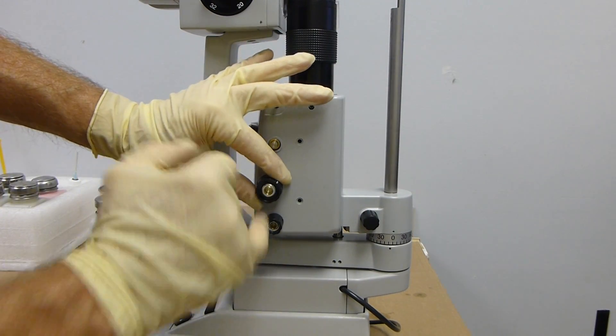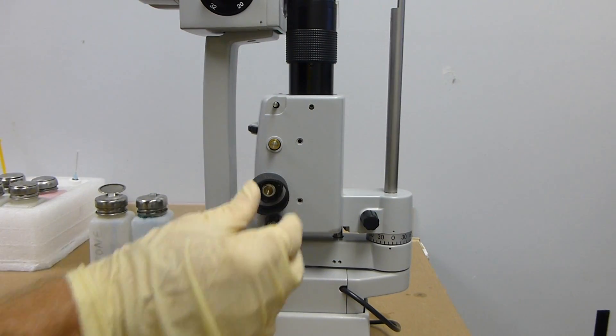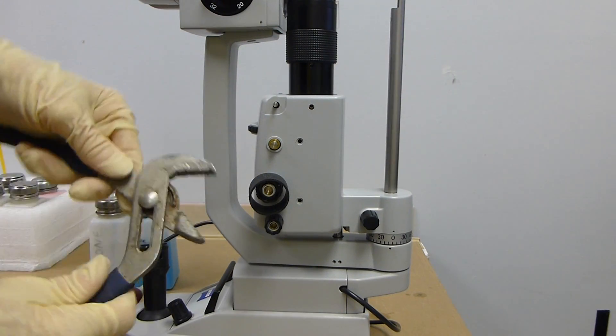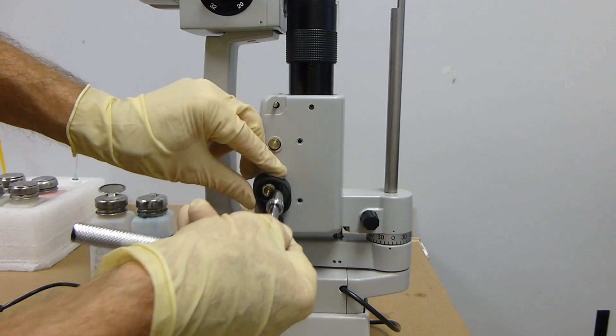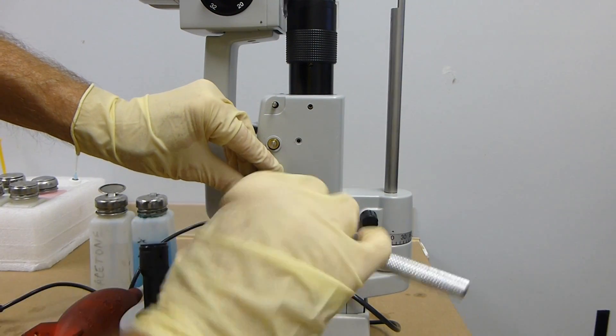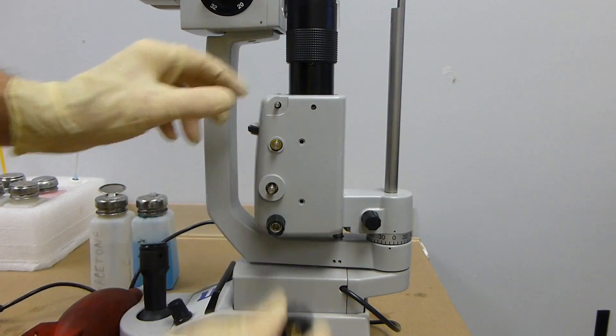Same thing with this. This is a 10mm. Put a little cover on it so you can hold it, and then loosen it half a turn or so, and these handles will come off.